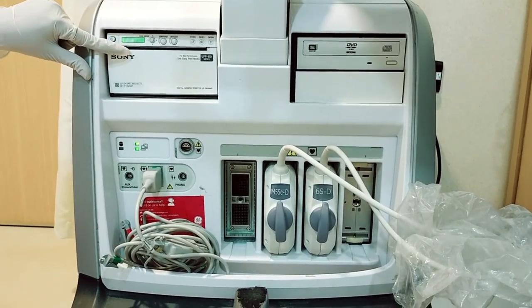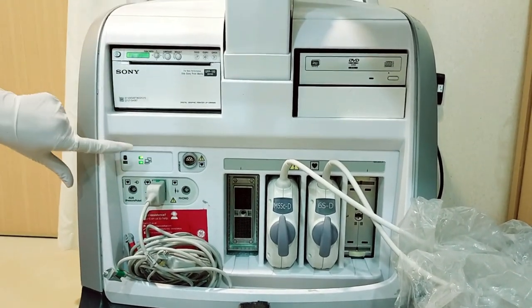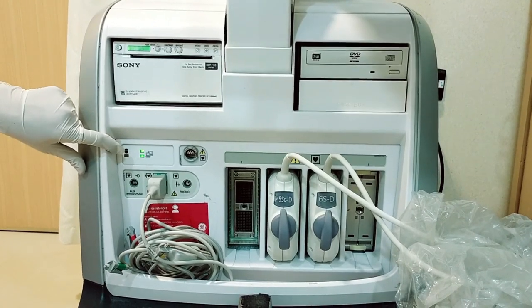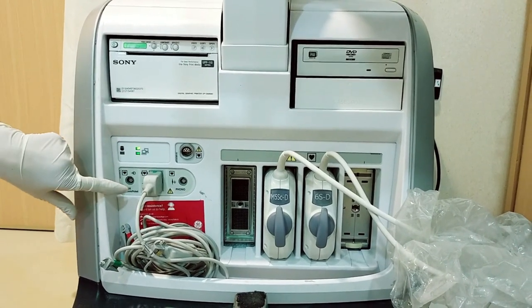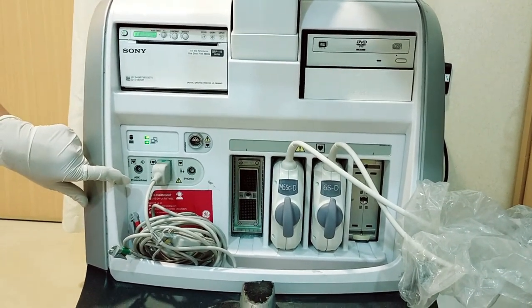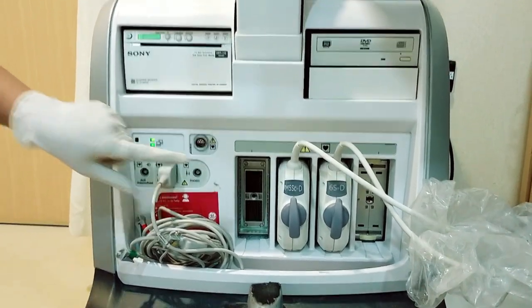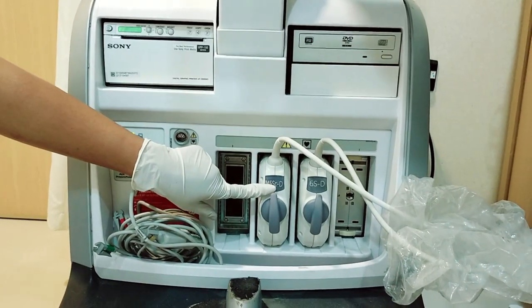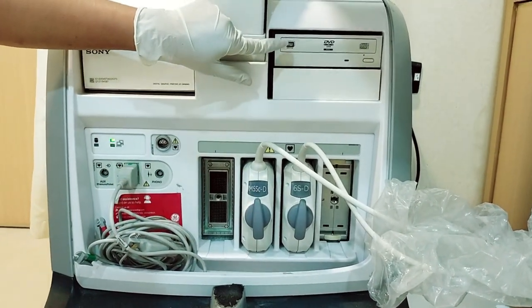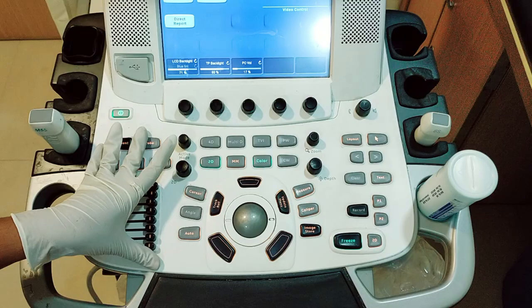Video printer, USB port and Doppler probe connection. This is the probe IO connection panel, this is the probe ports, then this is the CD and DVD drive.